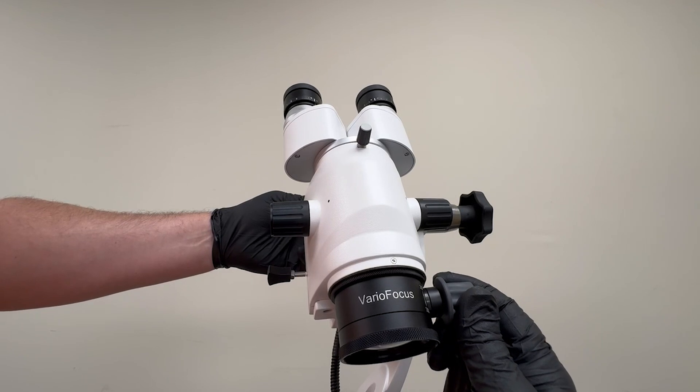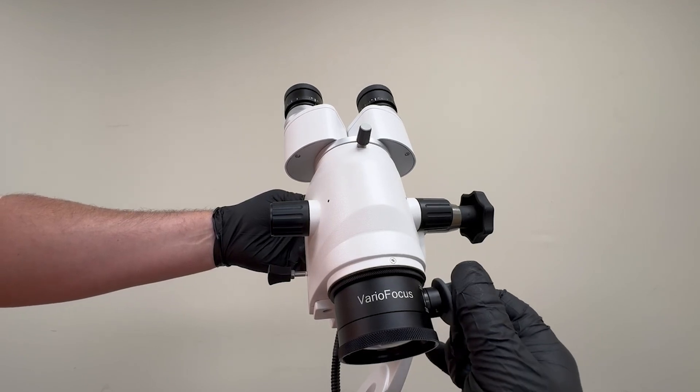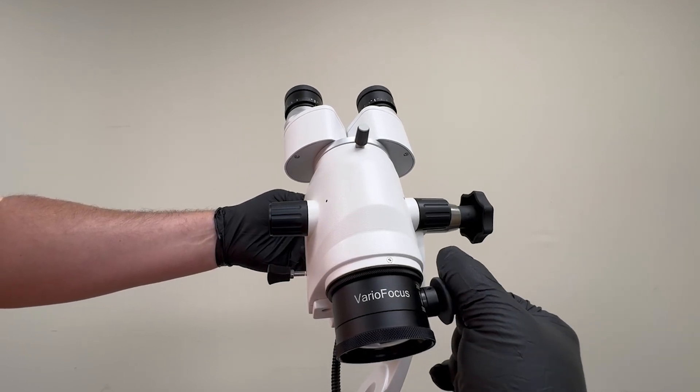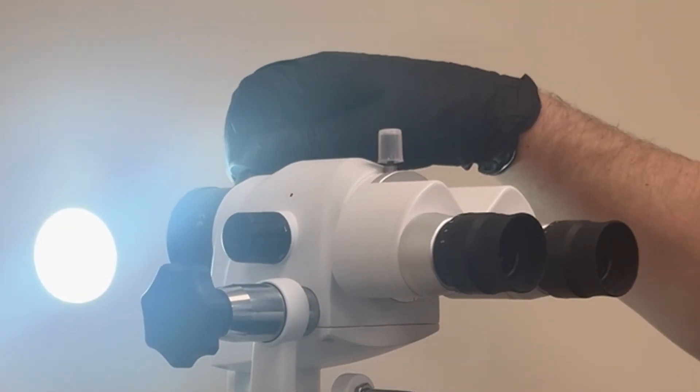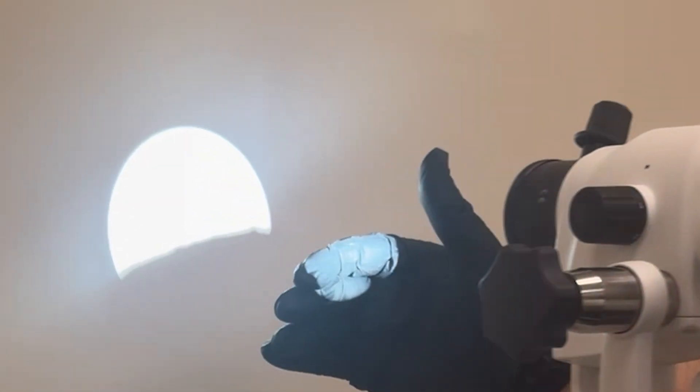The VarioFocus stands out as a game-changer by enabling users to maintain sharp focus across a range of working distances, from 200 mm to 350 mm, with a simple turn of the fine focus knob.